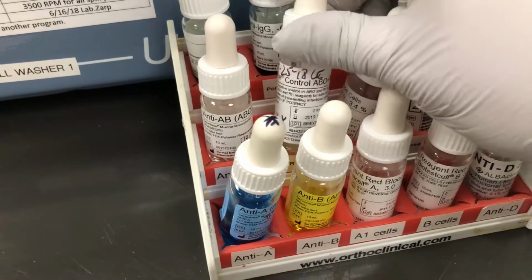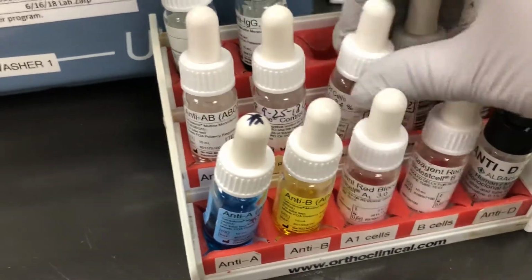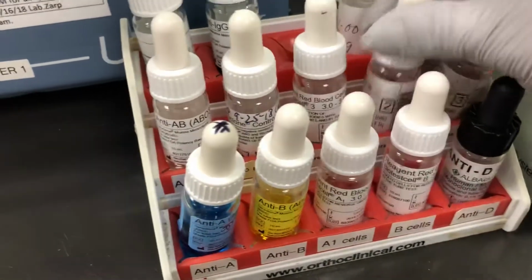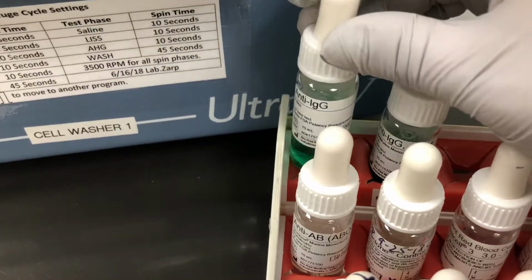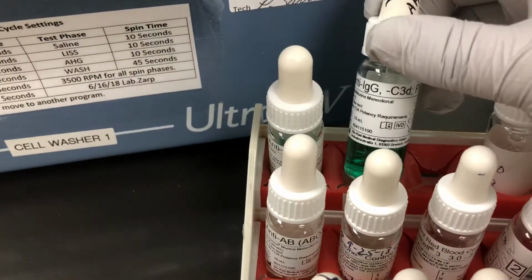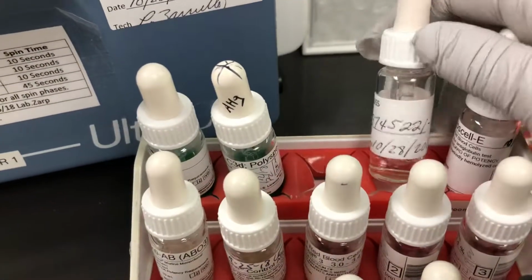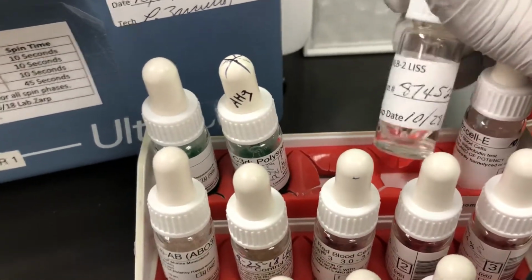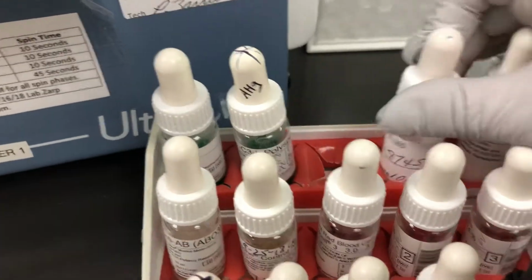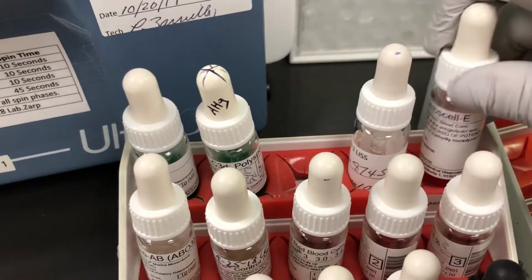Your RH control, we typically will use this on things like cord bloods, anything that we're questioning pan-agglutination, and screen cell 1, screen cell 2, screen cell 3. And here, to make it confusing, this manufacturer makes a green anti-IgG and a green polyspecific, so you can see we noted polyspecific on the top. And then we have our LISS, our potentiating agent. We have to write this on here because they come in large bottles that don't fit in our rack. And our Coombs cell, or our IgG coded check cells.